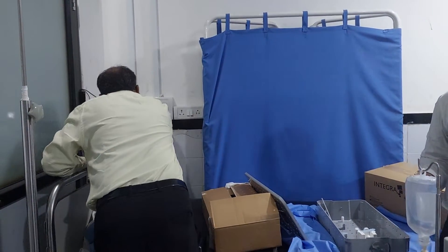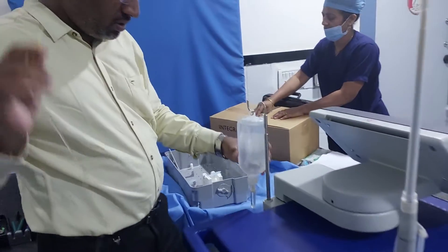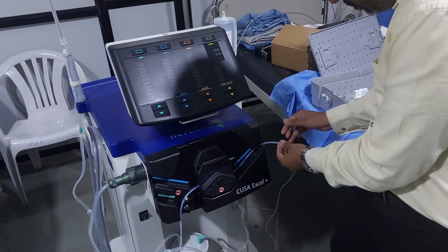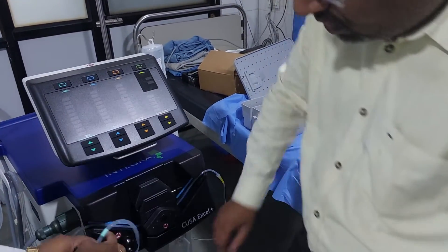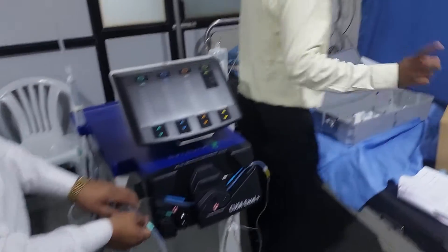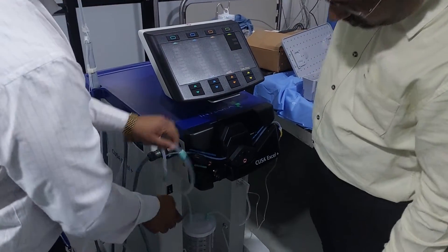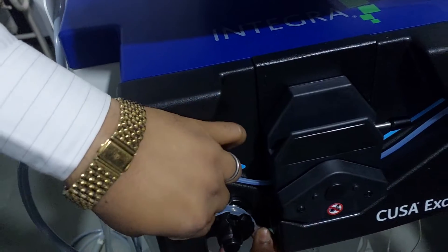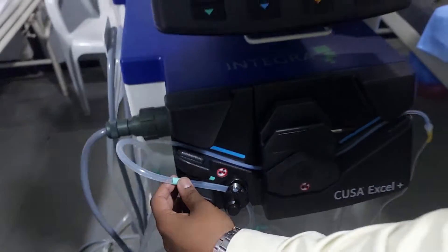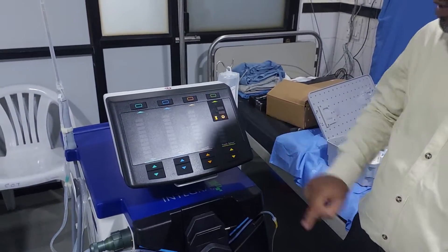Now I'm going to start the machine. Power supply — switch on. One more thing: you have to use an IV set and fix this connection here. Switch on all switches. After switching on, the machine will boot. At the starting, the machine will make some noise — don't panic, it is a normal starting procedure. Wait for some time; the machine takes some time to boot.